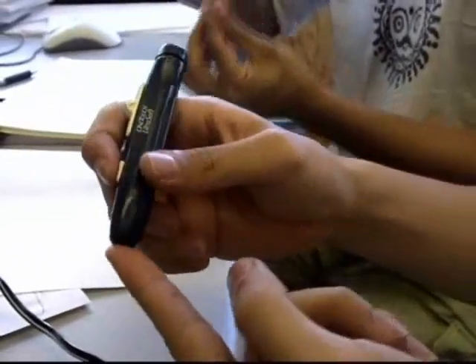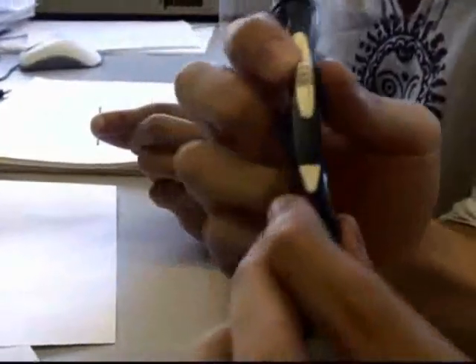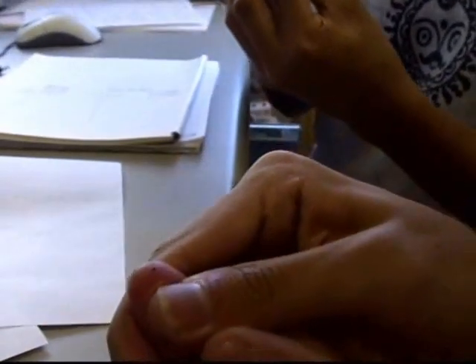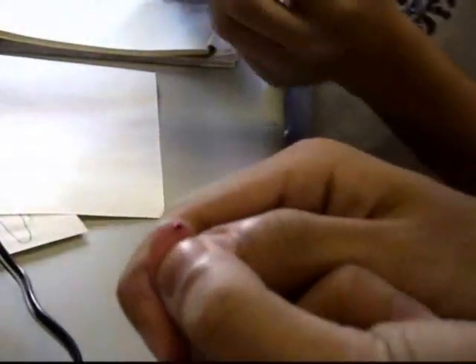What we do is we prick a hole in our finger, like that. It doesn't really hurt. This is the sensor that we're going to use. The first attempt didn't go deep enough, so we're doing it again. Alright, that should work — there's the blood. We're going to feed this blood into the sensor.